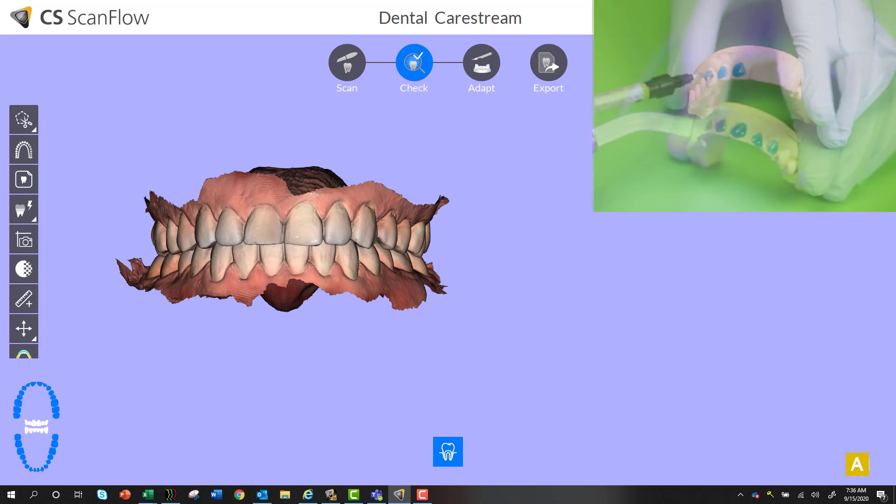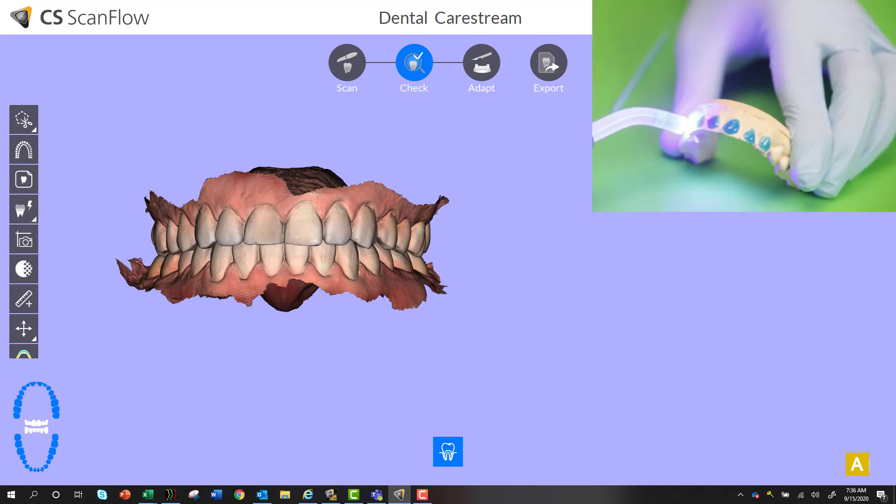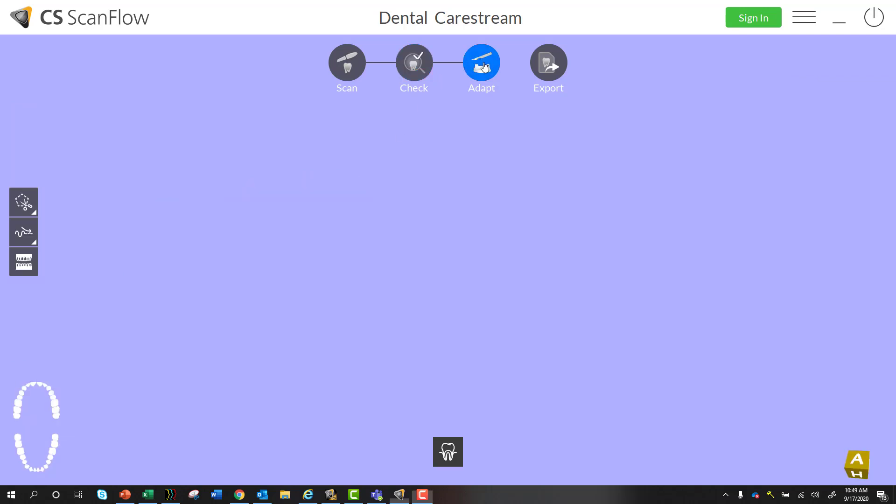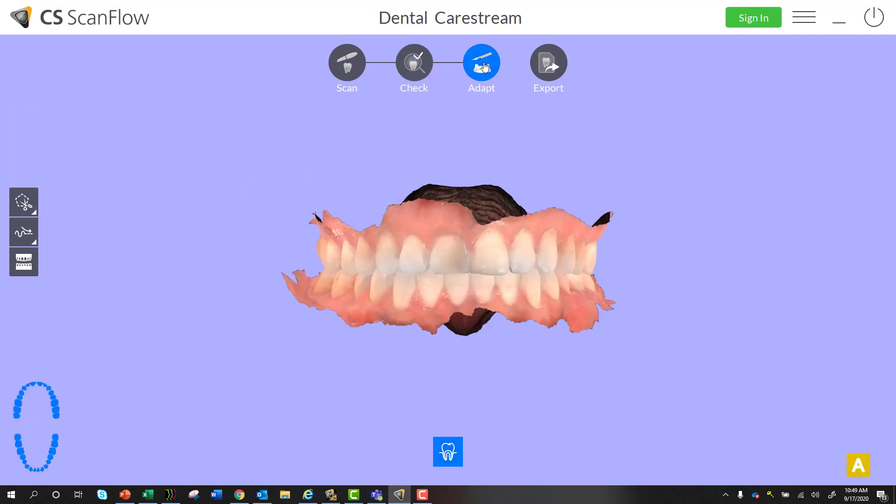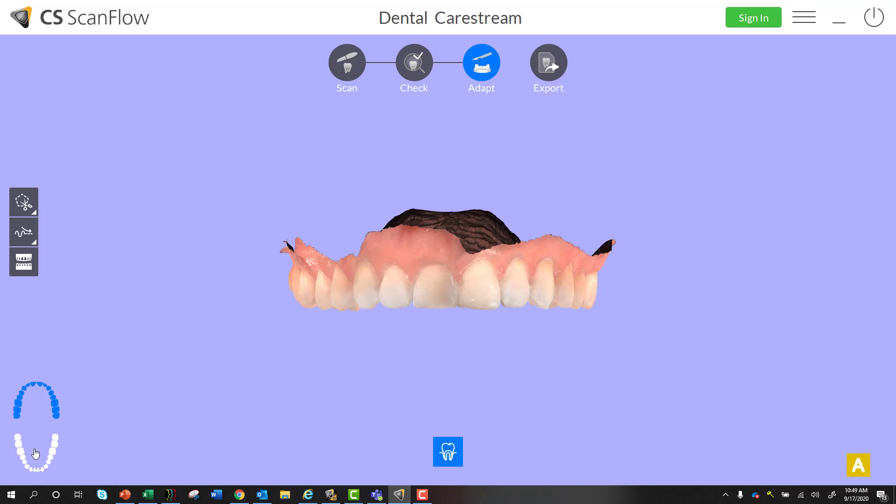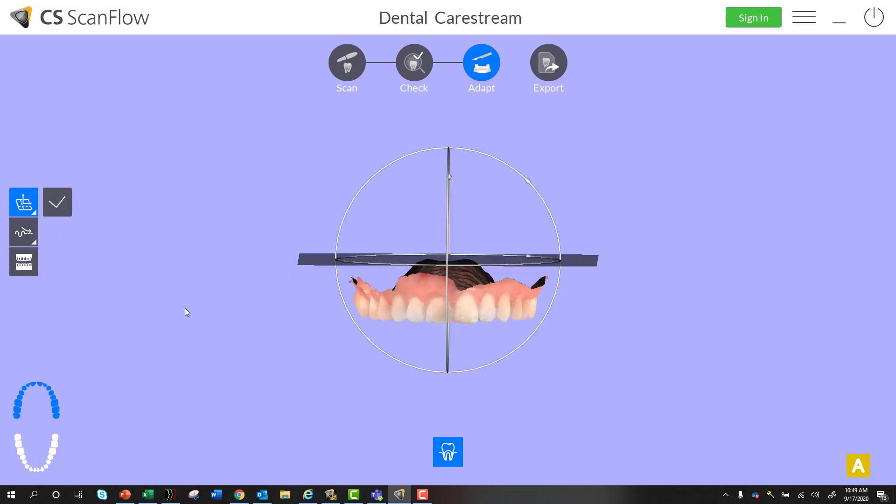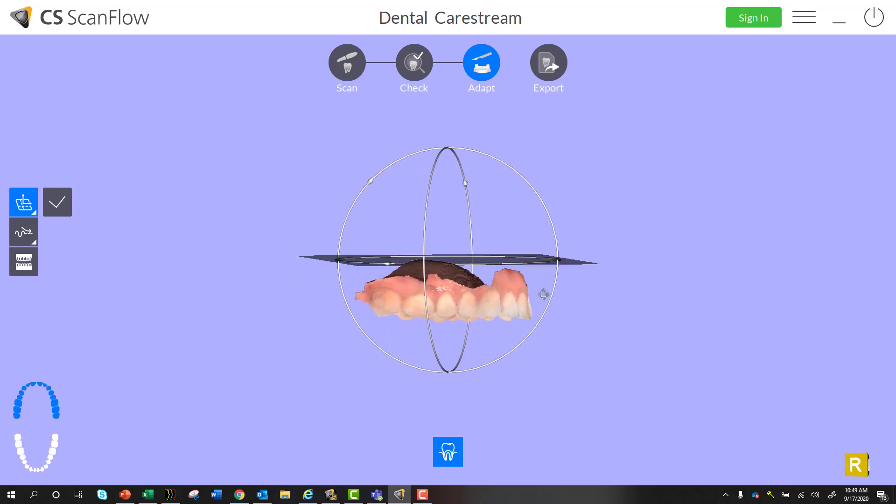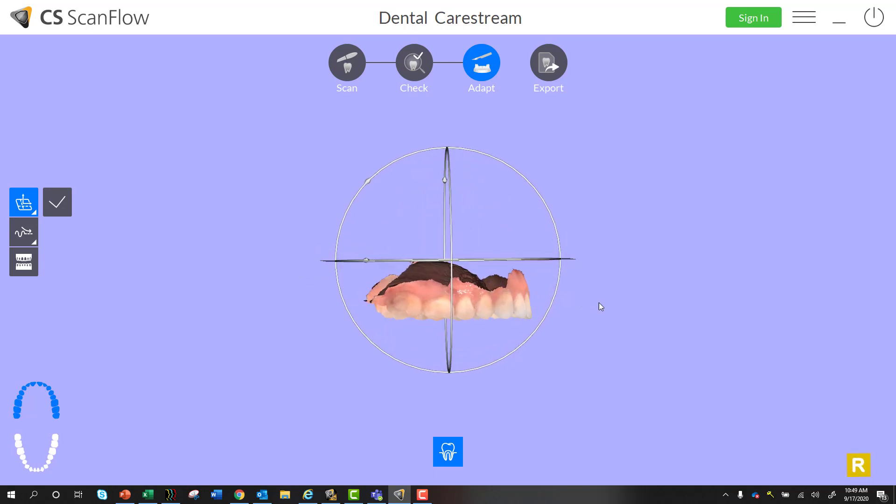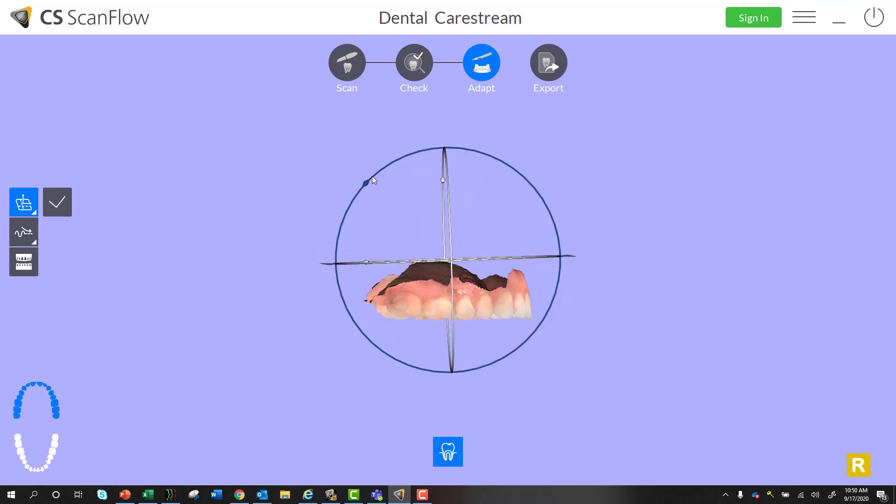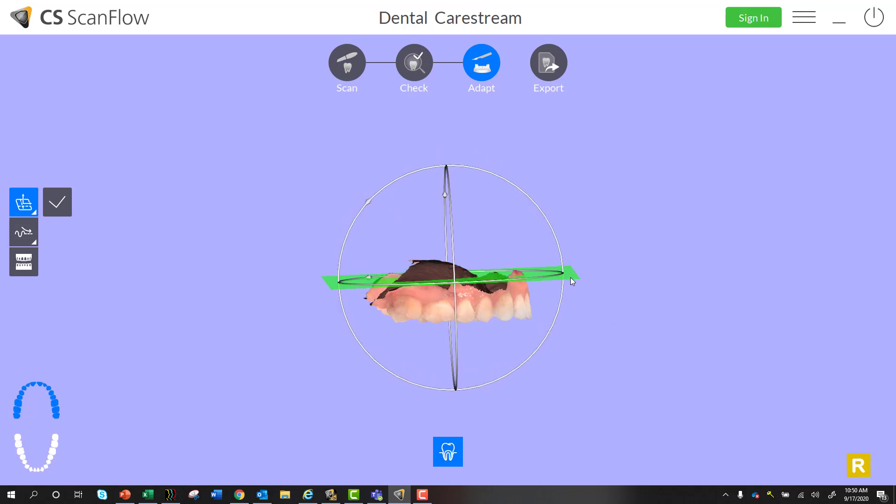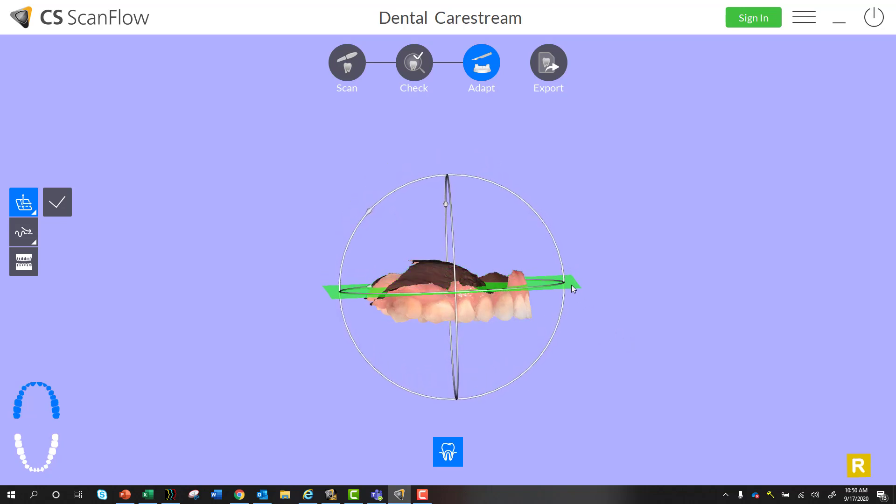Okay, so here is our model and we're going to go into the adapt step after the refinement or check step and we'll focus here on the maxilla. We can do first a plain cut. So let's take a look at this and I might want to angle this down a little bit more in this direction to make it even and then drag this down like so.